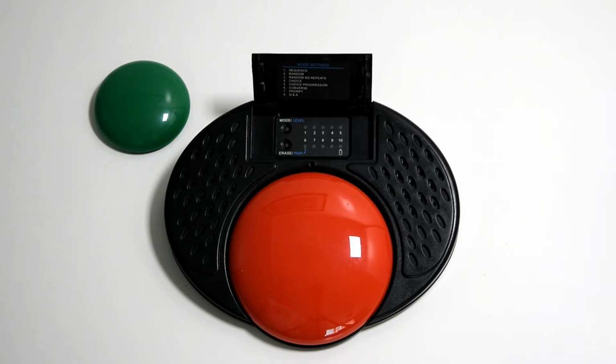So first of all, we're going to go straight into choice mode. Choice mode does exactly what it says on the tin. It offers two users, two different choices. So really good for obvious conversational techniques where yes and no or please and thank you are set up.